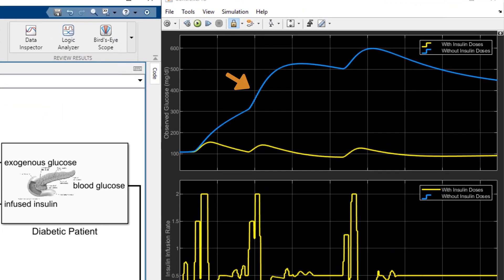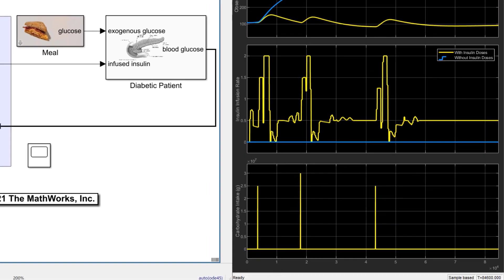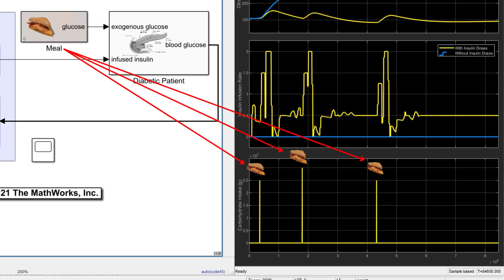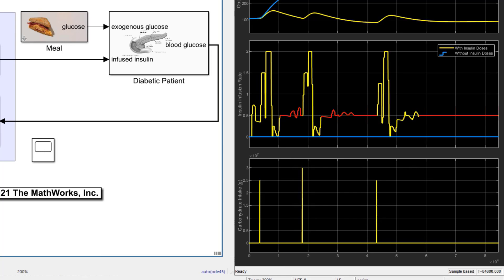The blue line in this plot shows that carbohydrate-based meals without corrective insulin doses may lead to hyperglycemic condition with very high blood glucose levels. The high glucose intake requires short-acting high insulin doses, whereas the fasting level low glucose requires long-acting low insulin doses.